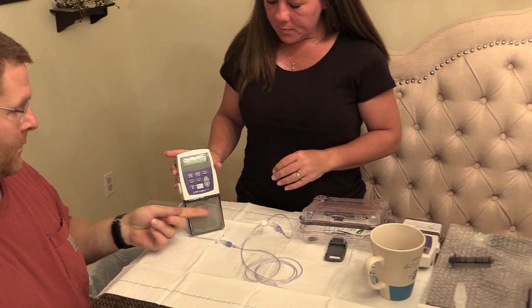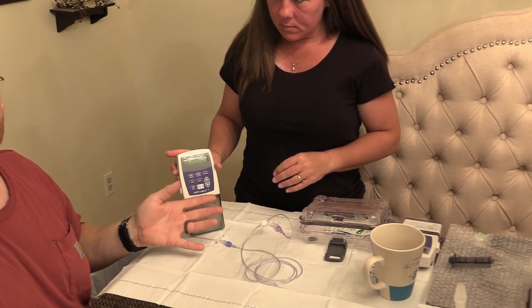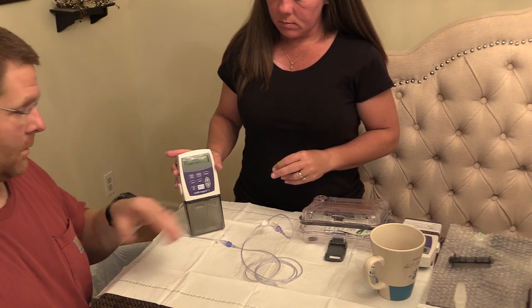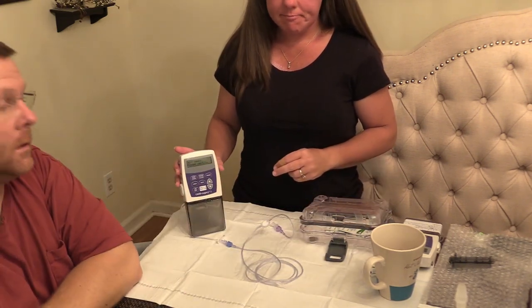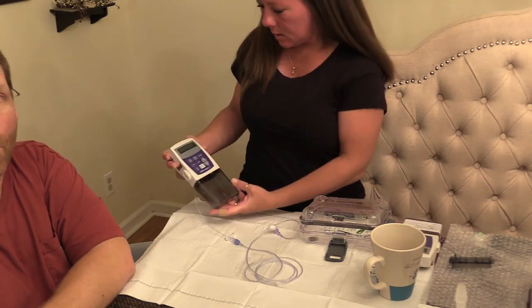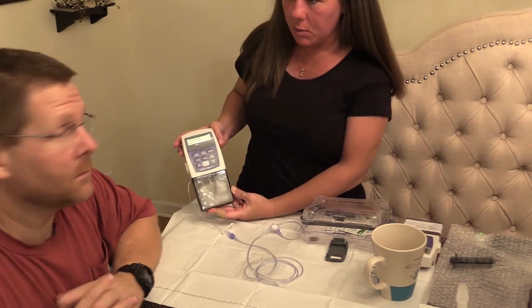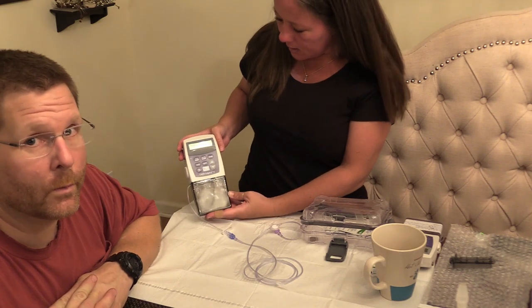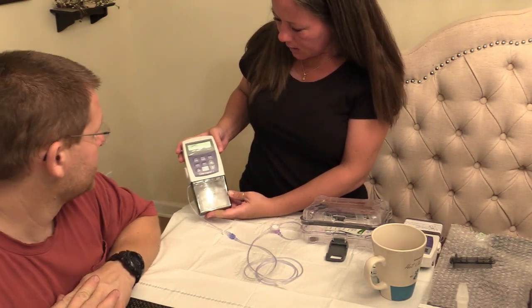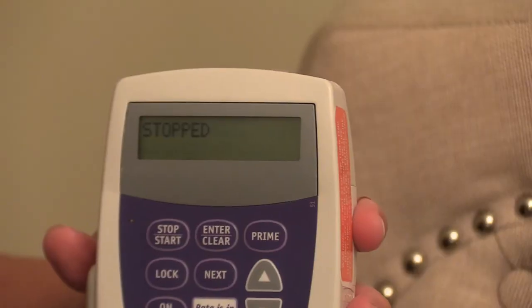Normally we would have our label already on this, but we just used the one we made tonight. We'll put a label on just like the other one — that's important, always make sure you do that. We were just trying to get this video done to show you.